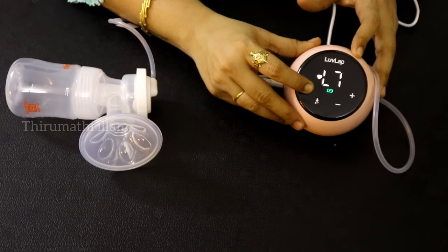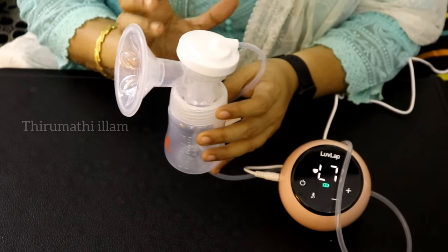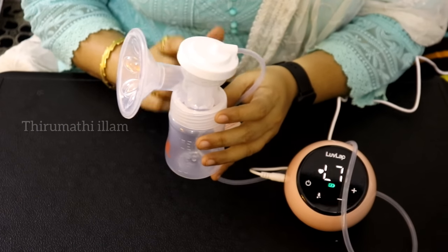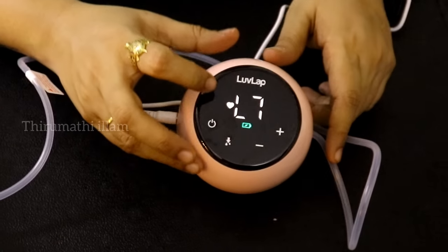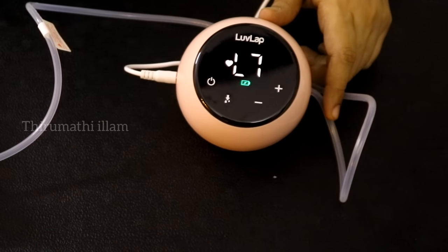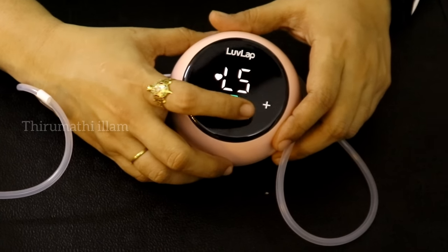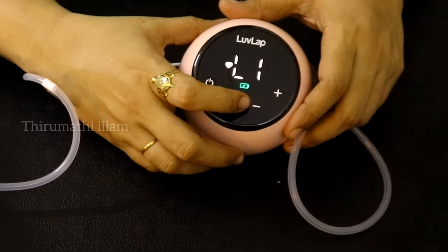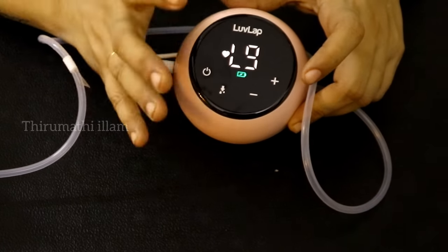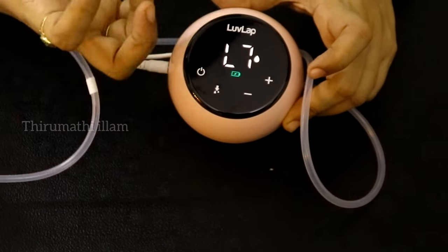Long press the button to start. Here at L7 you can stimulate and massage. There is a heart mark symbol for stimulation — you can massage with it. This is L7, level 7. If you click the minus button, you can lower the levels. L1 is the starting level. L9 will provide the highest stimulation. If you look at the drop icon, you can switch to extraction mode. This is the option for milk extraction.